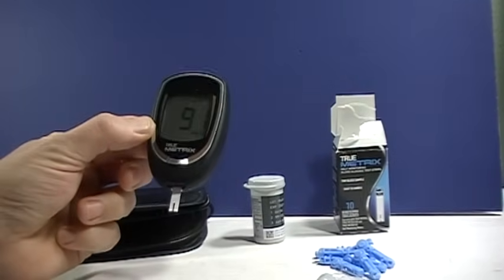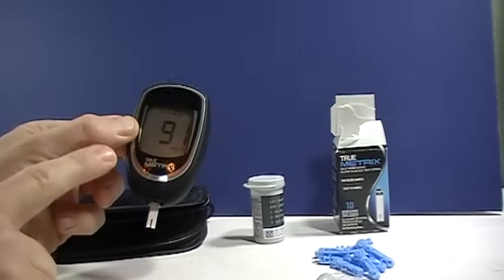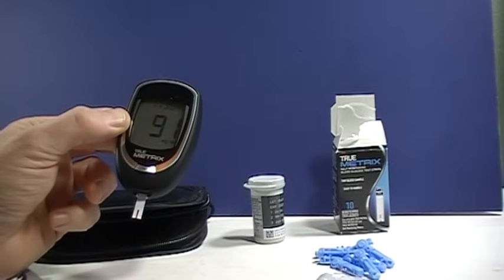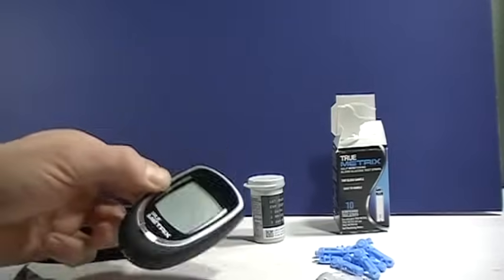And then you can discard that. Remove the test strip. You can record that reading in your diary. Include whether you've eaten or how long it's been since you've eaten. You can remove that test strip and discard it.